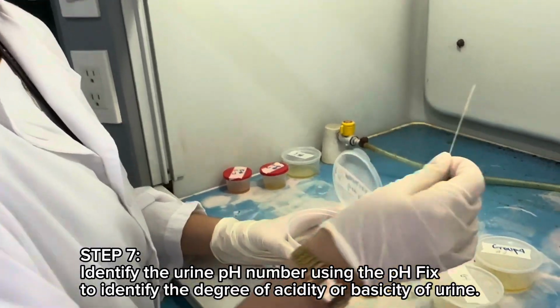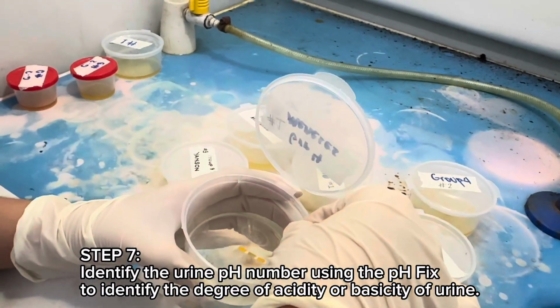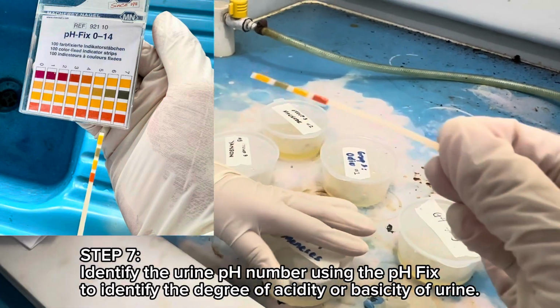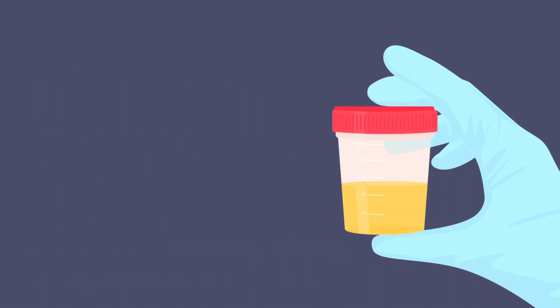Step 7. Identify the urine pH number using the pH fix to identify the degree of acidity or basicity of urine. Step 8. Discard urine sample properly. Step 9. Disinfect and clean equipment and return to proper storage. Step 10. Clean work area with disinfectant, then wash hands with disinfectant.